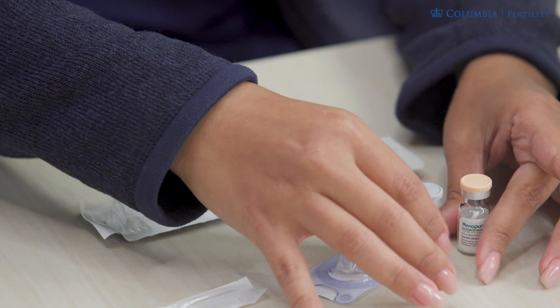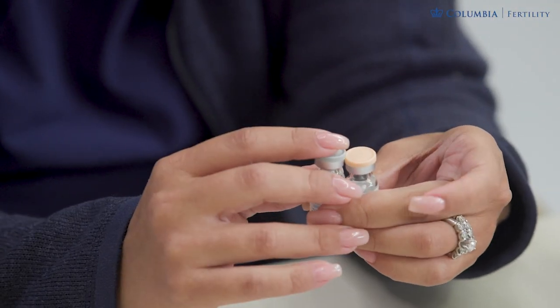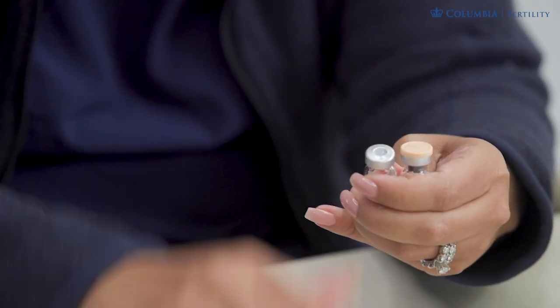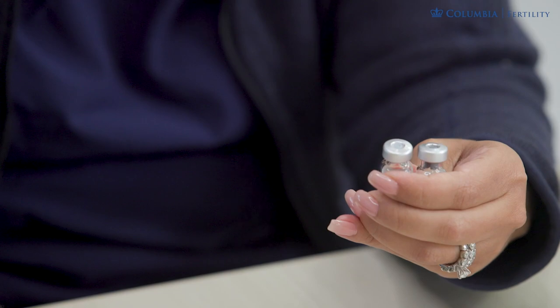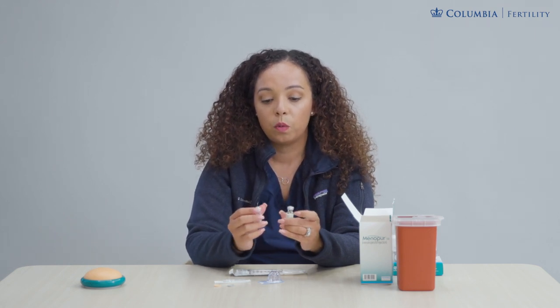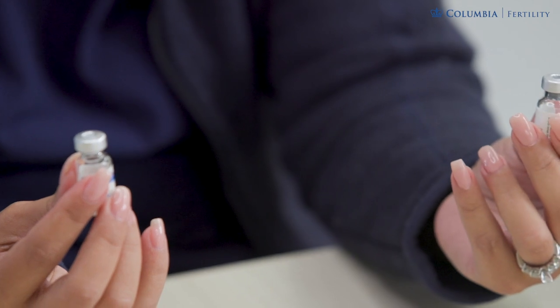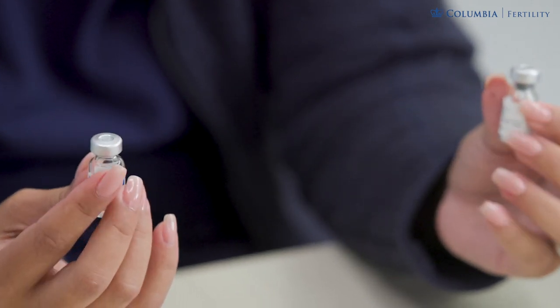The liquid vial and your powder vial do come sealed with small caps on the tops. You will remove these caps in order to work with the vials. You can open up both vials at the same time by peeling off the caps. Once the caps are off, take an alcohol swab and clean and disinfect the top of your vials. Please separate your liquid vial and your powder vial so you know what you're working with.